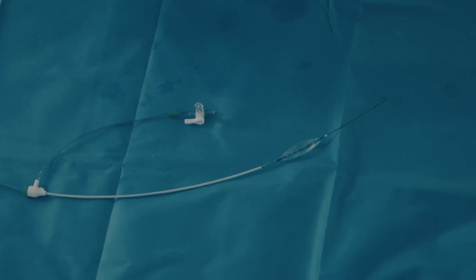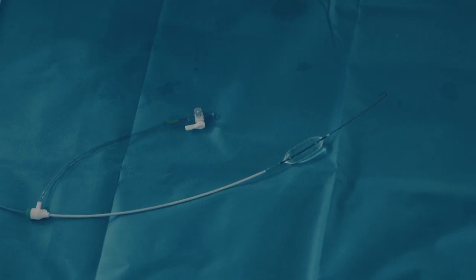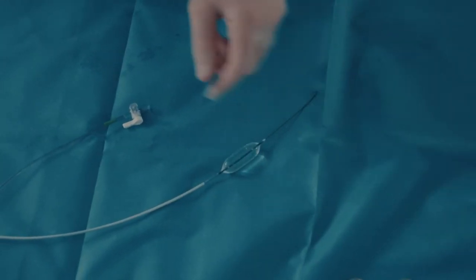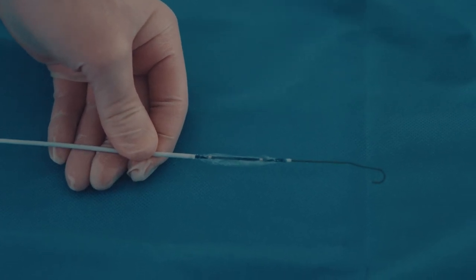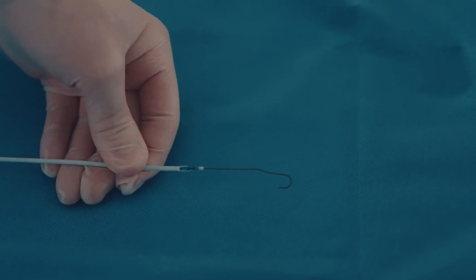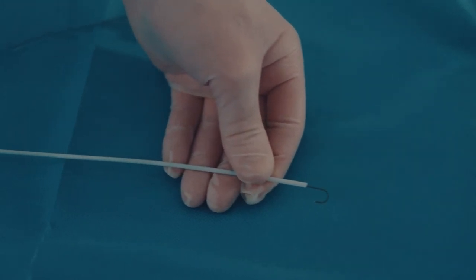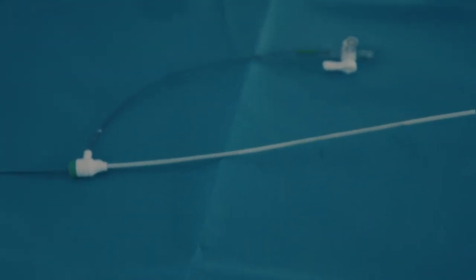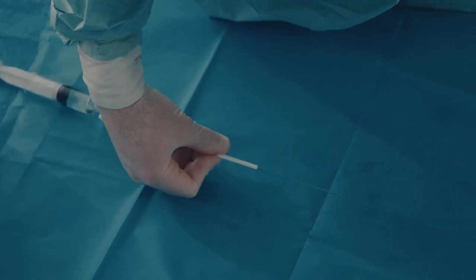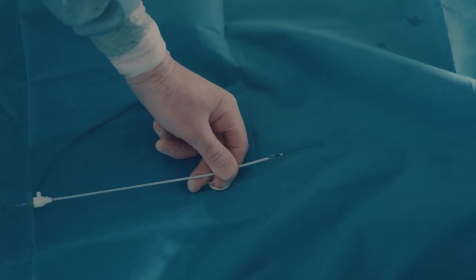This picture shows an inflated 15x30mm Reboa balloon with the guide wire mounted through a 6-French introducer. The X-ray markings are seen at both ends inside the balloon. This illustrates retraction into the introducer without rotation of the catheter — the balloon will enter with some resistance. This close-up of the deflated balloon illustrates how the wings of the balloon are folded by rotating the catheter as the balloon is retracted into the introducer, showing that the balloon enters easily.